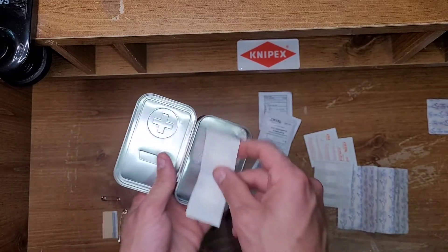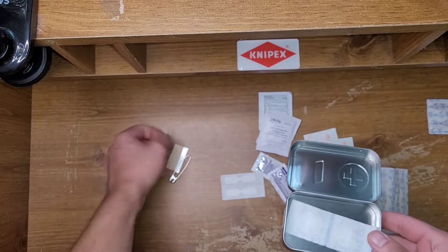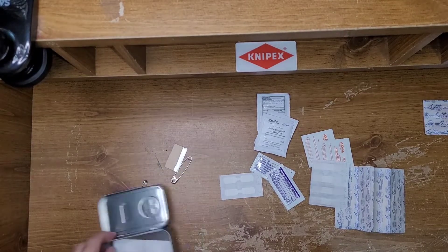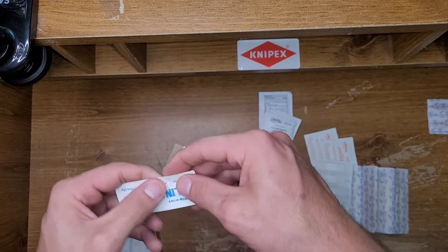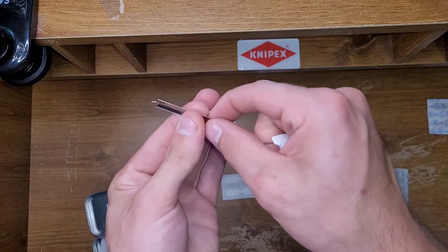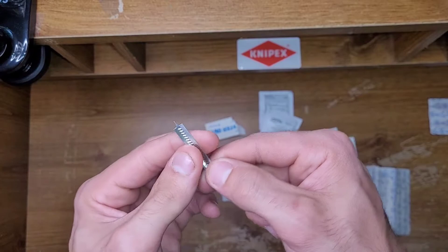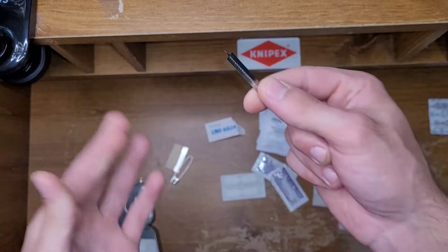I don't like this already — I don't understand this. I mean, for a splinter or something I guess, but this is also kind of big for a splinter. It would have been nice if instead of these they could have given you something like this. These things are kind of neat — they're called Splinter Out. They're very cheap, and they're just a little piece of metal with a very pointy tip. They are sterile out of the package, so you don't have to worry about infections. They do work pretty well — I've gotten a few splinters out with them. It's almost like tin can metal, but they do work well.